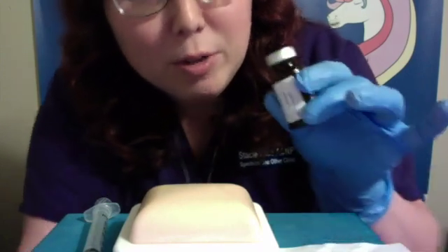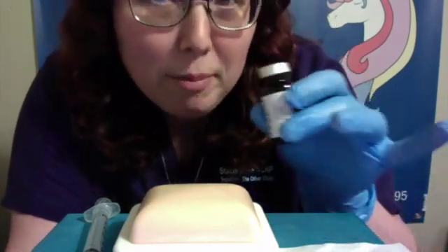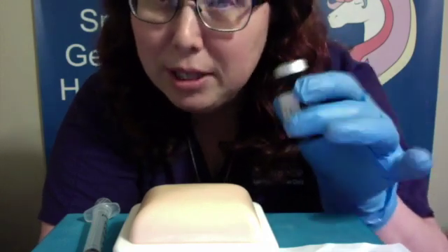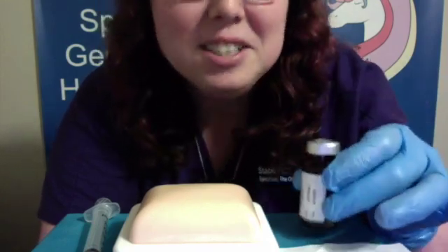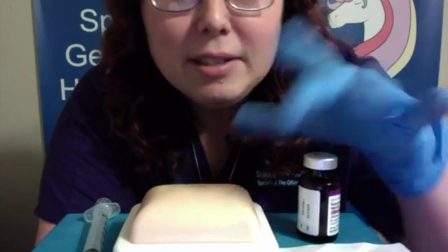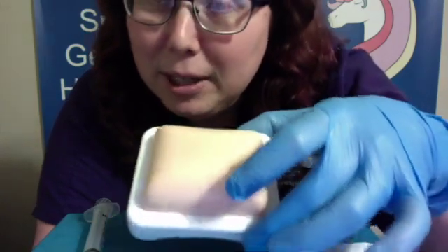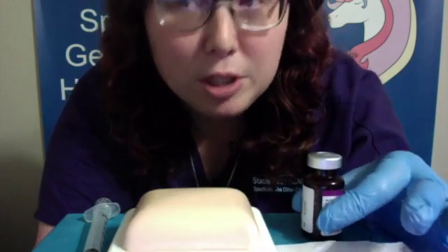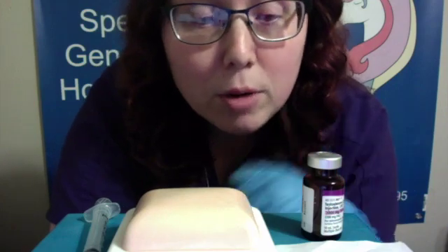This is a vial of testosterone that I have borrowed from someone. I will not be drawing the medication out of it — I will just draw air because I don't want to ruin their supply. So this is also going to be my little fake skin for injecting. Without further ado, I'm going to stand up and we're going to go over the steps for a subcutaneous injection.